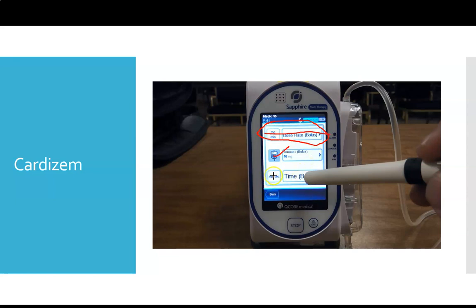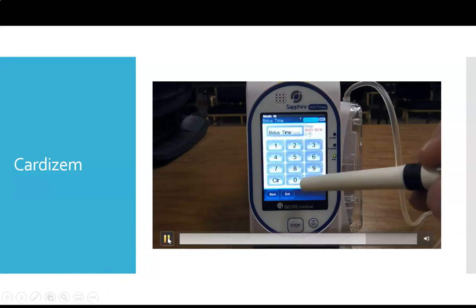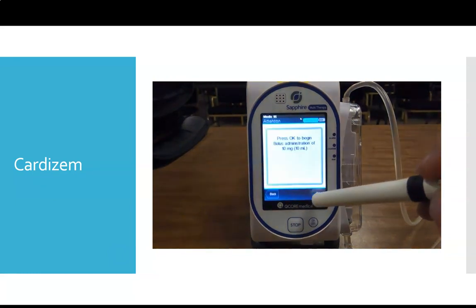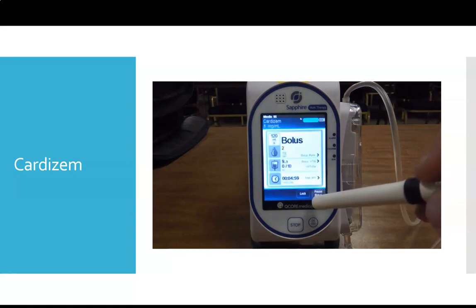So we have to enter 2 out of the 3. So we're going to click time. We just want to enter in a time. We know we want 10 milligrams, give it over a certain amount of time. So our 2 out of 3 that we're going to enter here is going to be our bolus amount and the time of our bolus. We're going to let the pump do the math on its own to figure out the bolus rate. Enter in our time. We'll say we're going to do it over 5 minutes. Enter. Confirming how much of our bolus we want to give, 10 milligrams, which is 10 milliliters. The pump will now give the bolus.